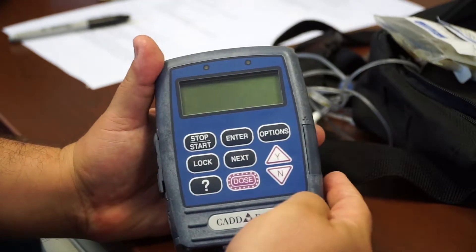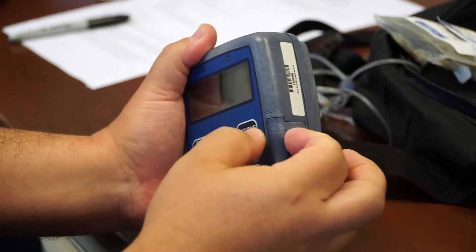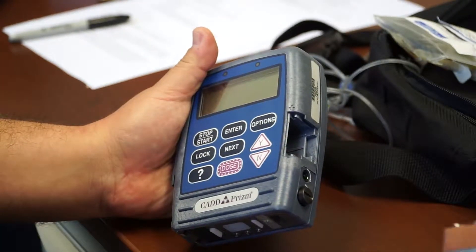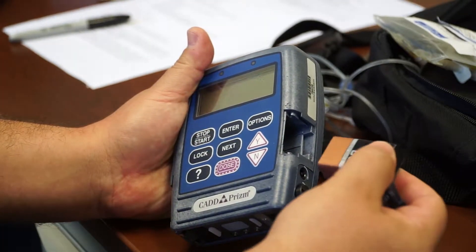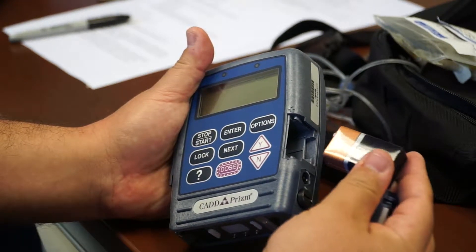The way to set the battery in there is you turn this thing to its side, press the little white button, remove the old battery and put the new one in. Sometimes they will actually flip this battery over to put it in there, but not power on the unit.